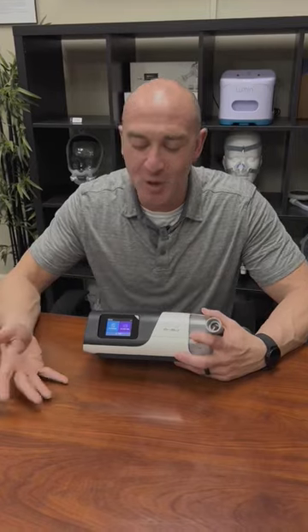Hi, this is Mark from LiveWell CPAP and Medical Supply. I've seen a lot of questions on the internet, and I've had a lot of patients call me and ask why their machine is still running after they've turned it off, and I'm going to show you why that is.